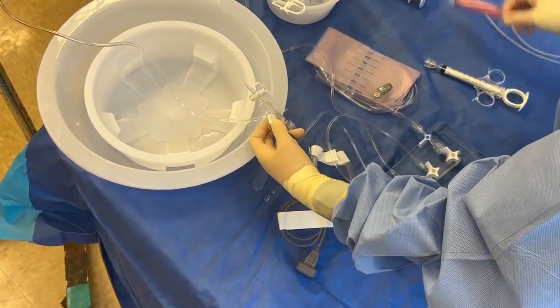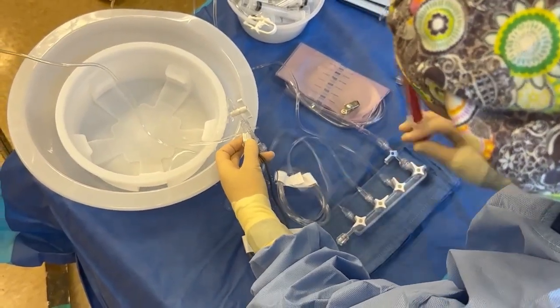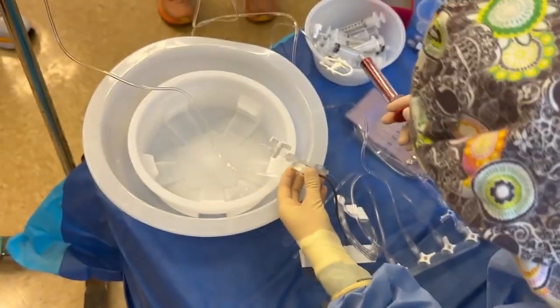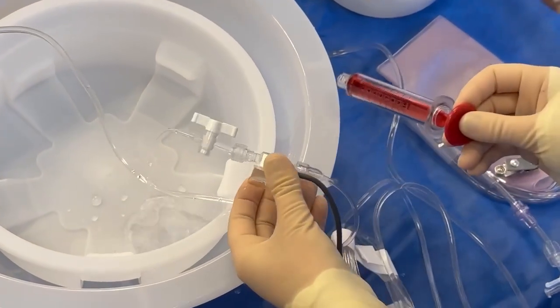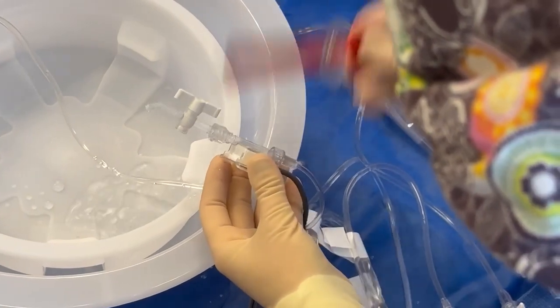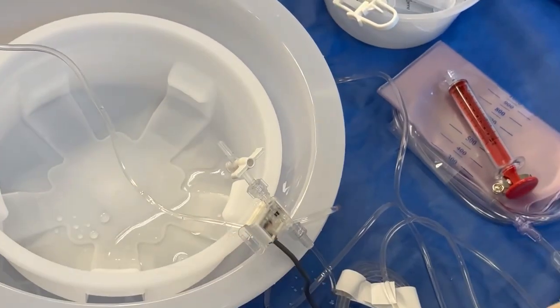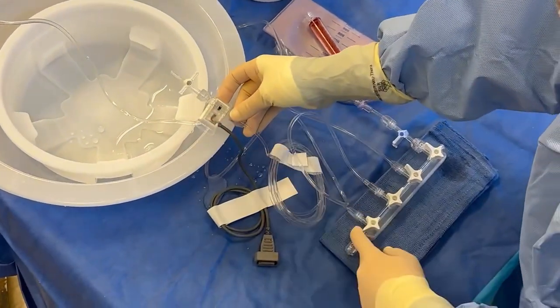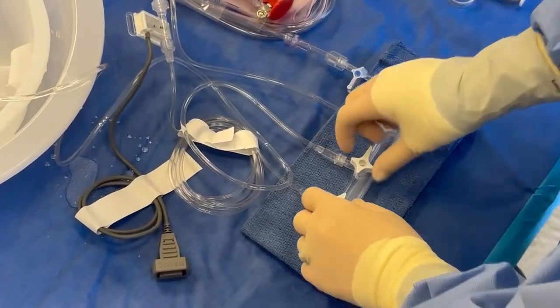You can take whatever you want to beat this with. I tap here because bubbles tend to get lodged here. I tap here, and then I make sure there's a bubble right here — see it? I tap below the bridge, see that bubble that was there hiding? Then I tap above the bridge. As soon as it's done flushing and I feel good about it, I turn it off. There's nowhere for it to go because the end port is now closed. So now I just flushed my AO line using my pressurized heparinized saline line.